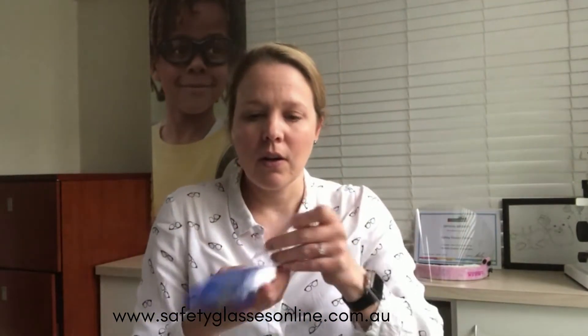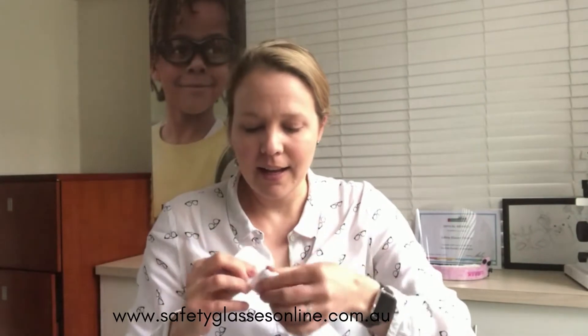So there you go — you can easily peel that off, and you just need to peel the one off the front as well, which again is easier said than done. Actually, this one might have already been peeled off — yep, okay, that one's already been peeled off.